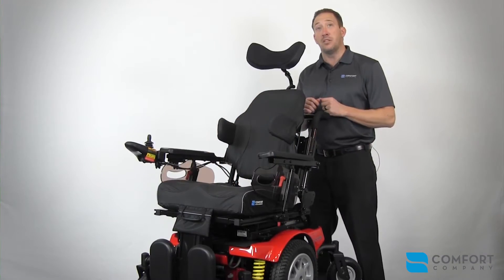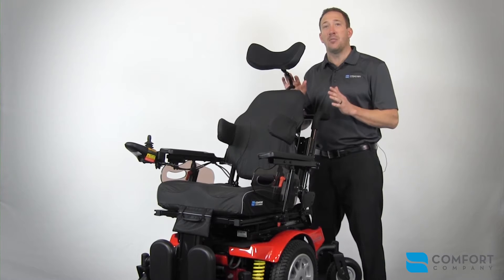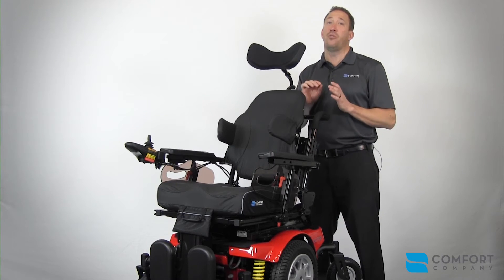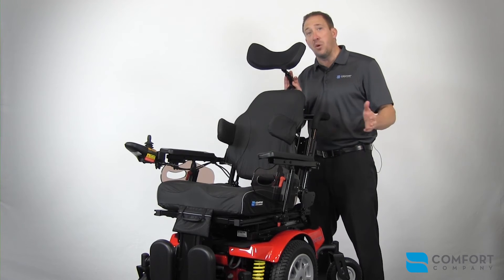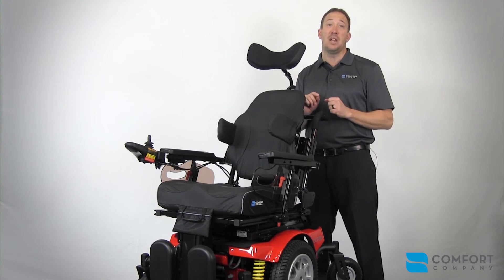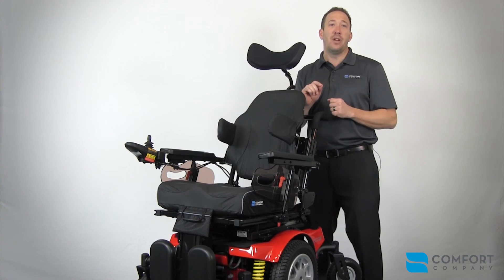Examining this total seating solution and trying to understand what it means not only in patient comfort and safety — the Medicare reimbursement for these coded items would be around $1,500 to your dealers. I know I covered a lot in this video and I've truly only scratched the surface in patient seating solutions that you can now offer your dealers with this OEM integration project between Avid Rehab and The Comfort Company. Please don't hesitate to reach out to us in any way that best suits your needs, keeping in mind that our website is probably your strongest resource to help you answer any questions that may arise while you are out there selling. Good luck and thank you for your support.